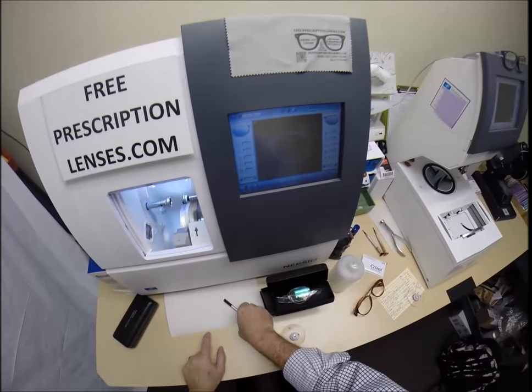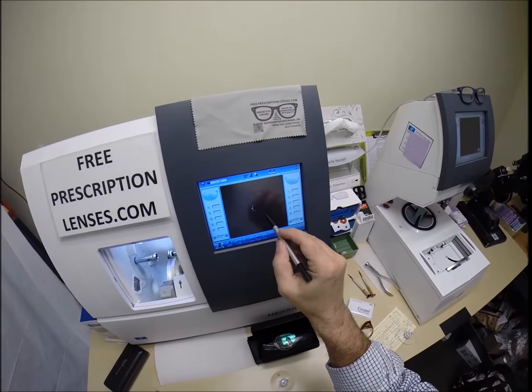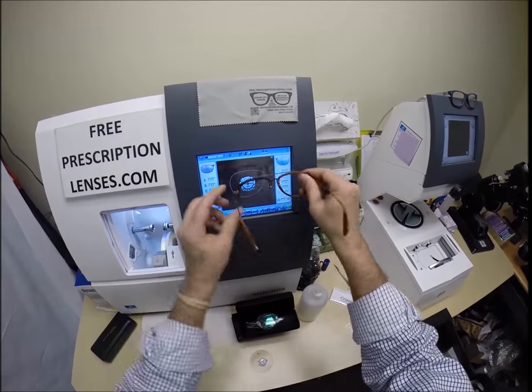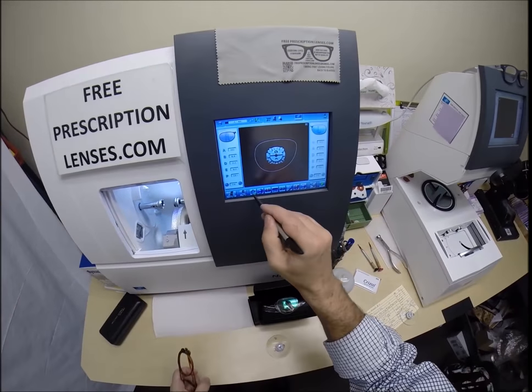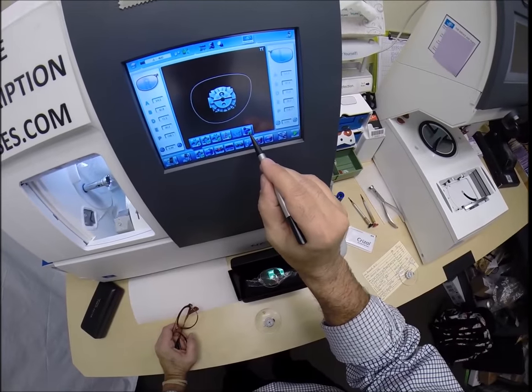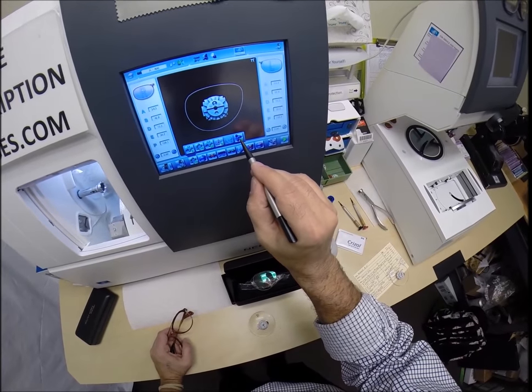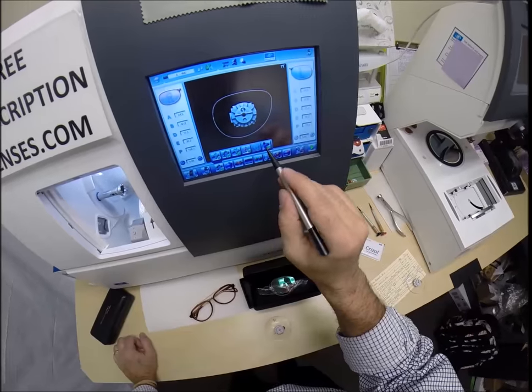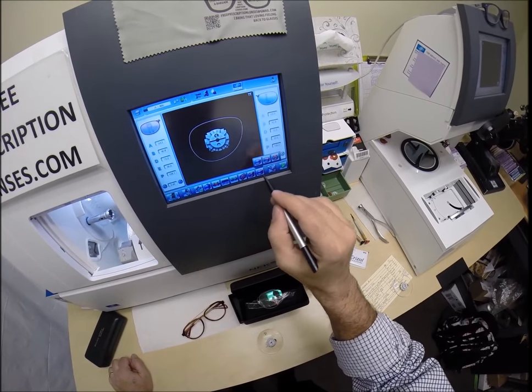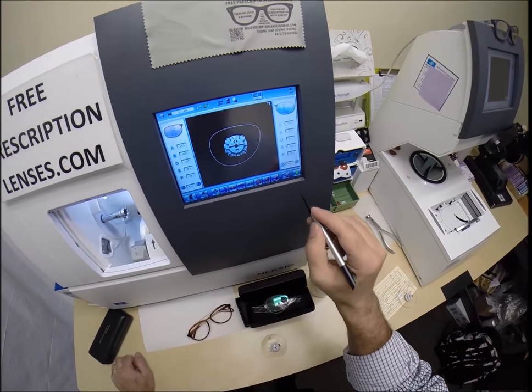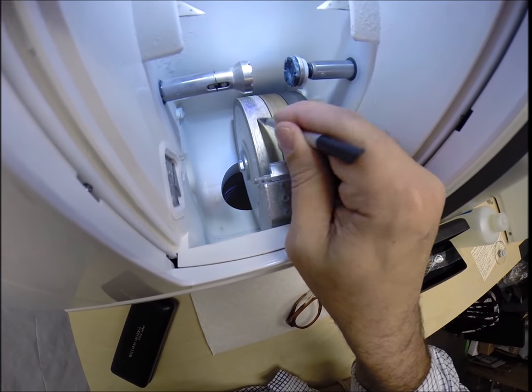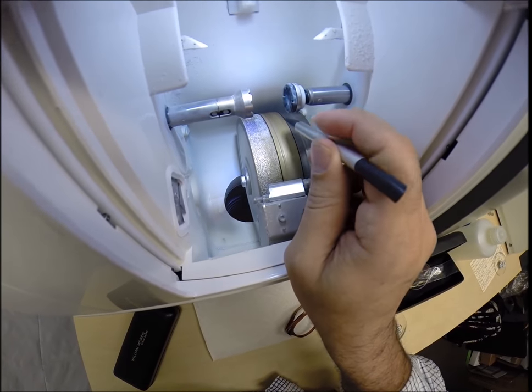Let's wake up the computer. That is the shape that we will be cutting. That is your frame. These are polycarbonate lenses. I'm not going to polish the edge of your lens because it won't be seen. I'm only going to put a safety bevel on the rear concave surface of the lens. The actual cutting wheel is over here on the far left. It's going to act like a heavy grit sandpaper to grind away your lens material until it's the final size.